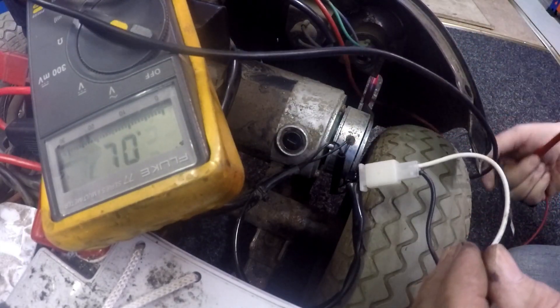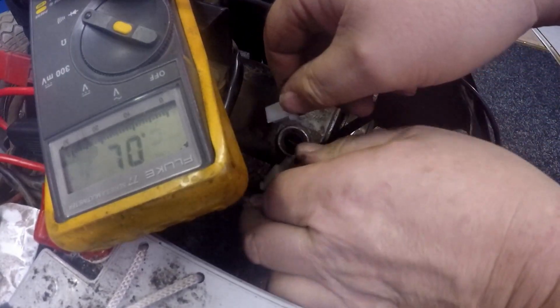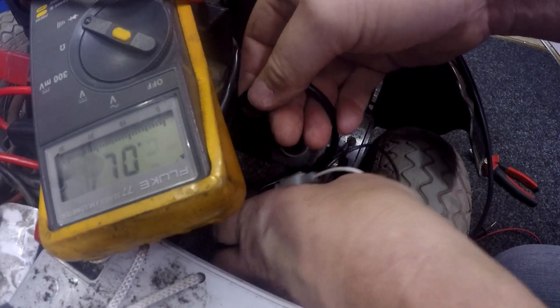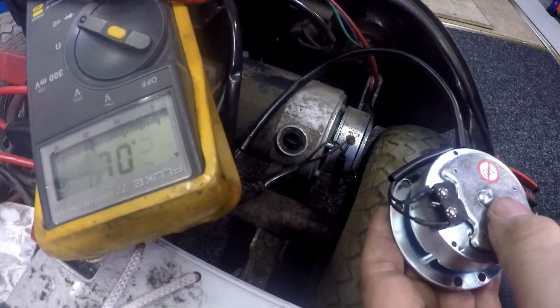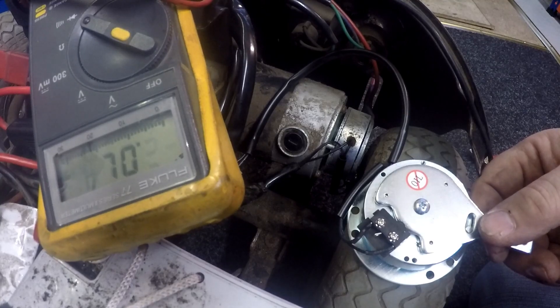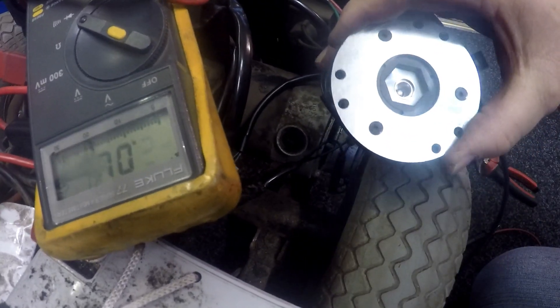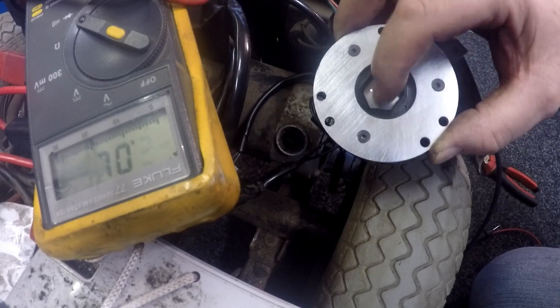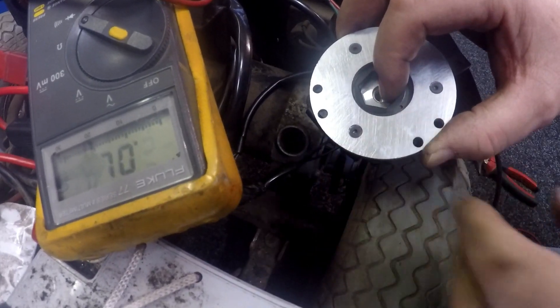Since there's no continuity, I know I've got a new brake so I'm going to join the new brake up. There we go — joining the new brake up and it's set to drive. Switching the scooter on and pressing the lever to go — I'll try reverse. Okay, you can see it's freed off and you get the audible reversing tone.